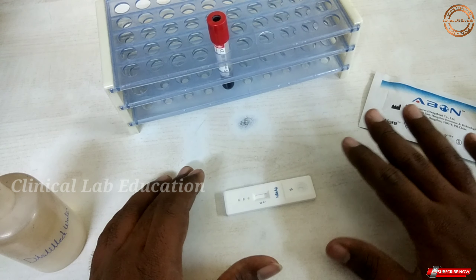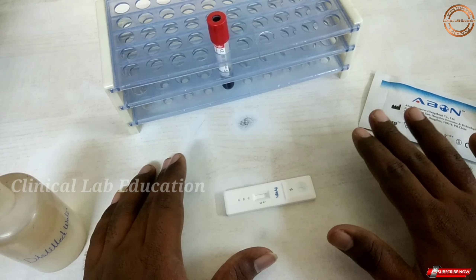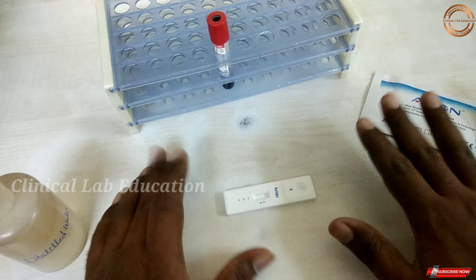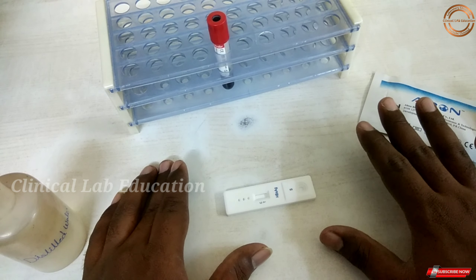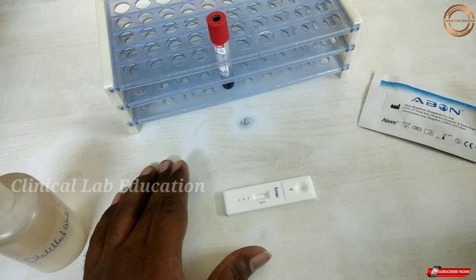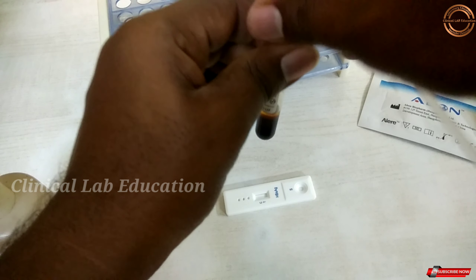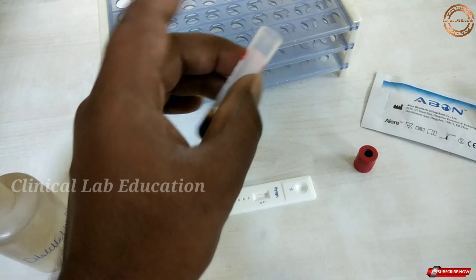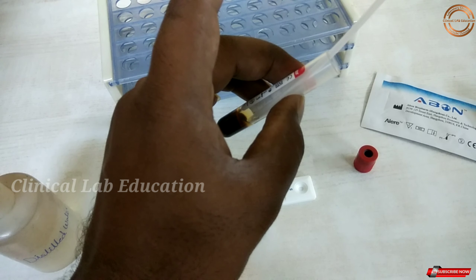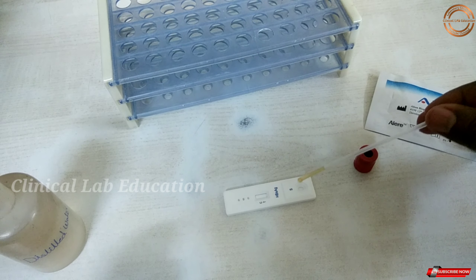Here is the S — the sample well — where we apply the patient sample. We can use the dropper from the kit to add 3 drops of the patient sample into the S well.